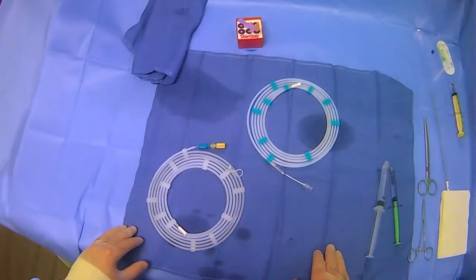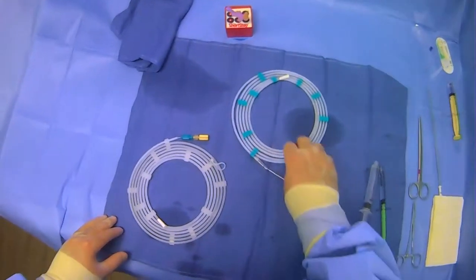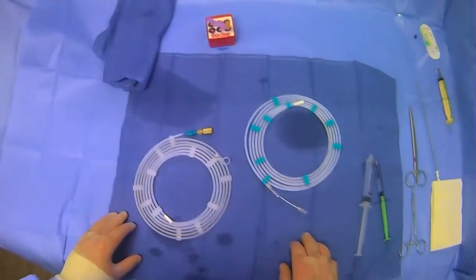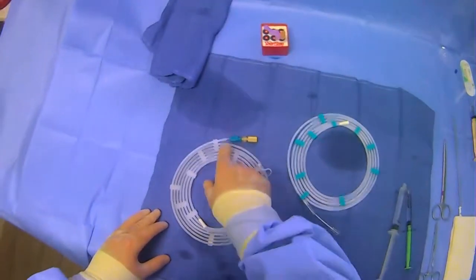Now we're going to go over how to use a micro snare kit. This particular kit comes with a microcatheter and then the micro snare.